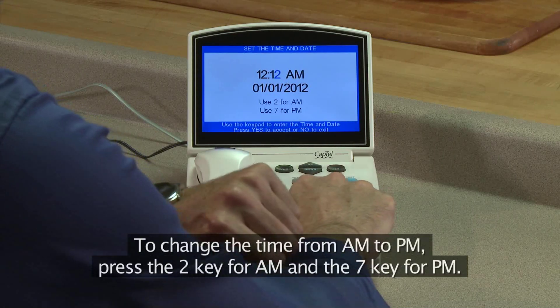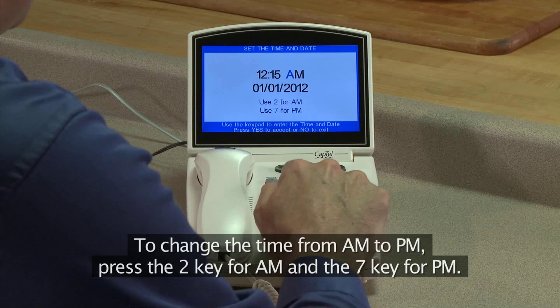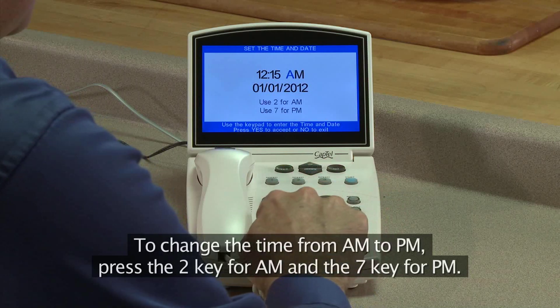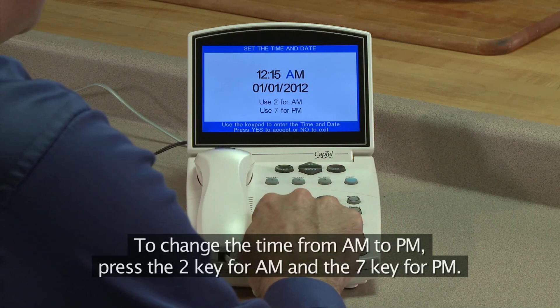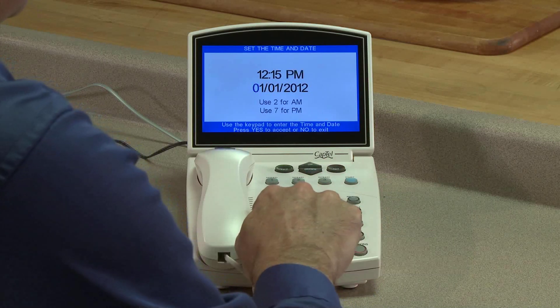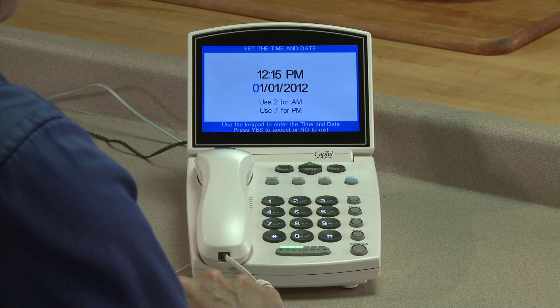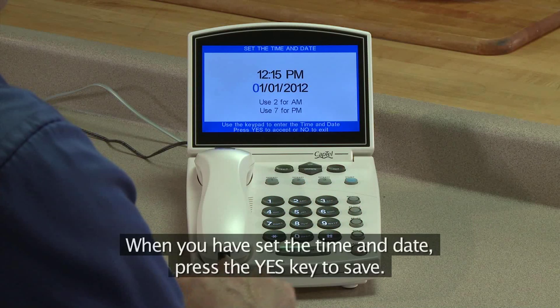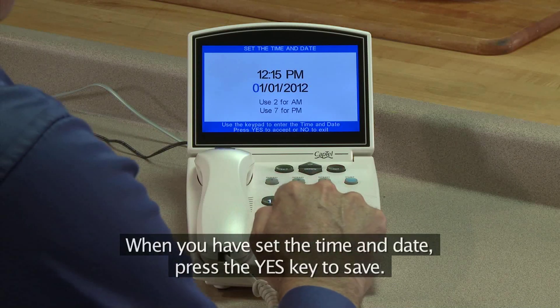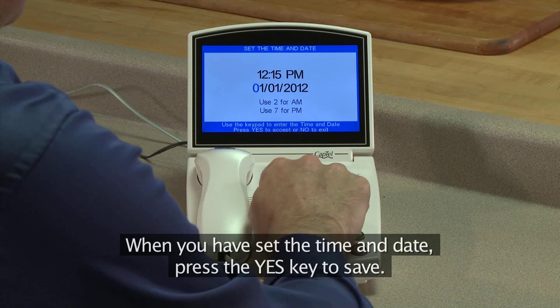To change the time from a.m. to p.m., press the 2 key for a.m. and the 7 key for p.m. When you have set the time and date, press the yes key to save.